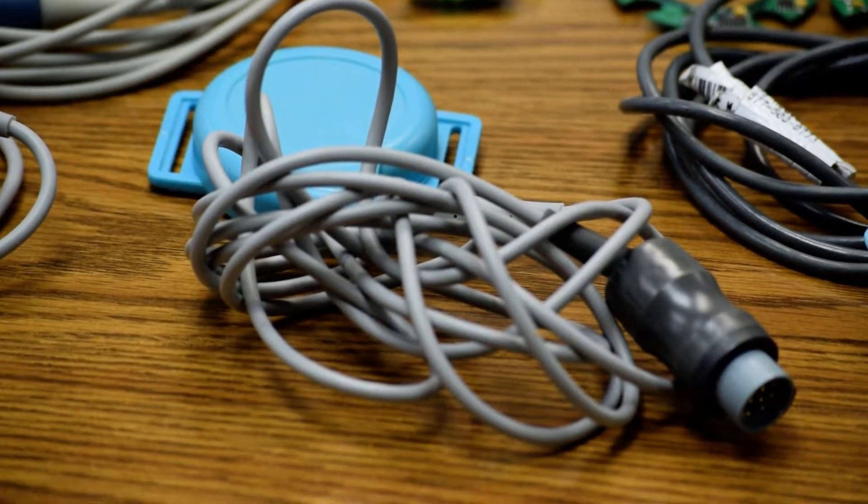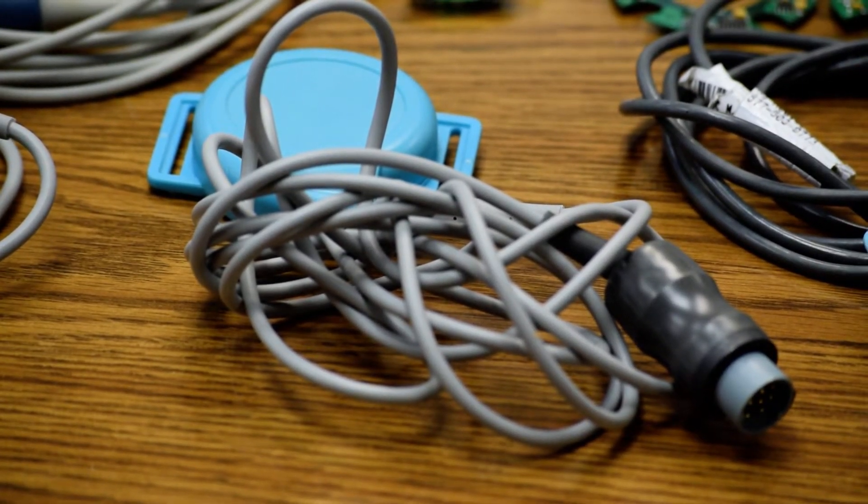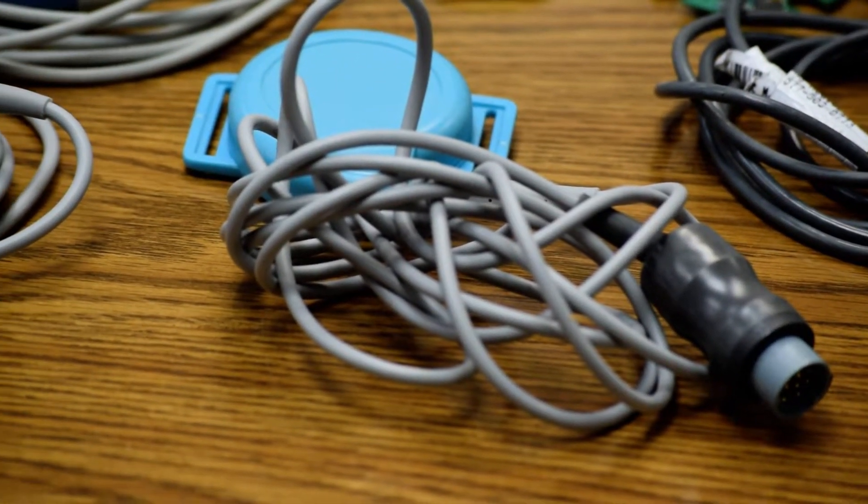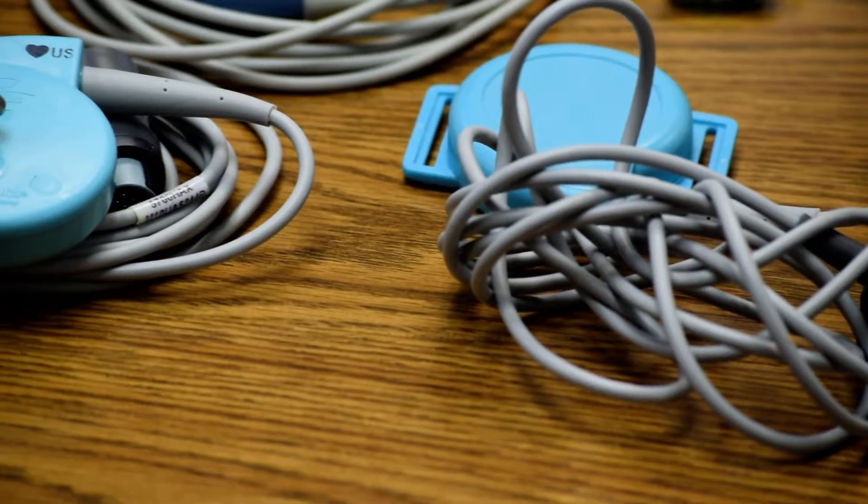Various types of transducers used with patient monitoring, fetal monitoring, ECG cables, lead wires, electrode cables.